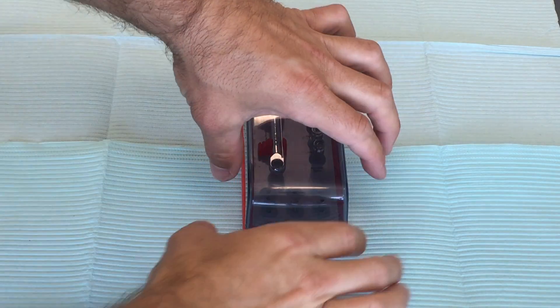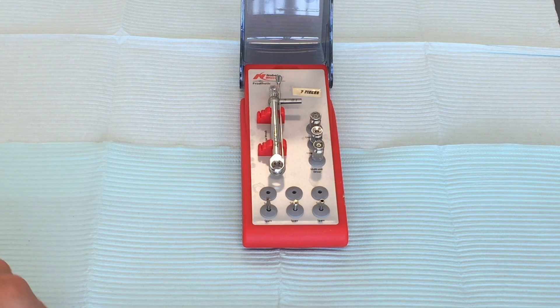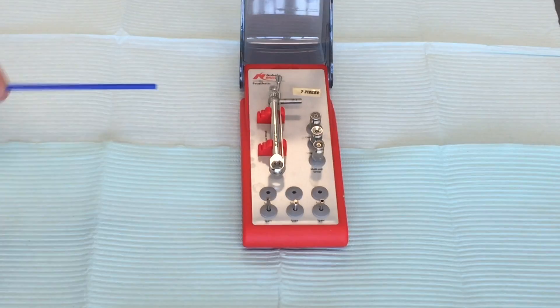When you check out a Nobel restorative kit from the dispensary, this is what you're going to see. It might also come in a small silver metal box, but it should have the same components to it.